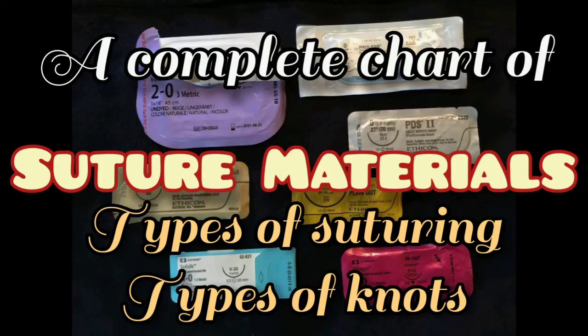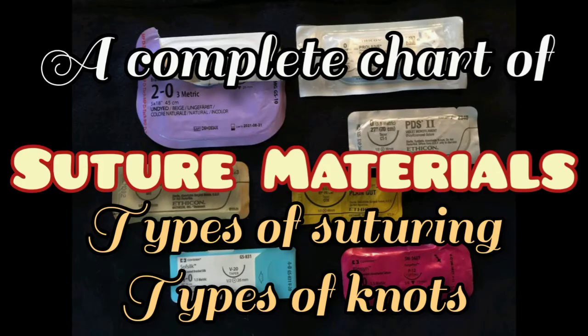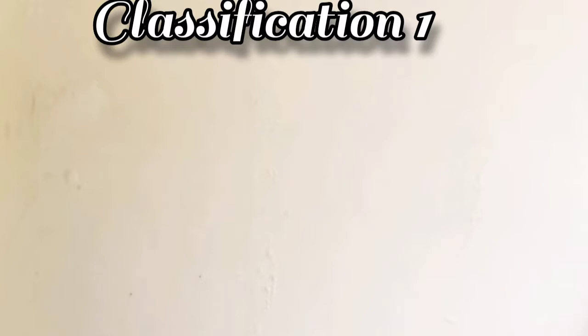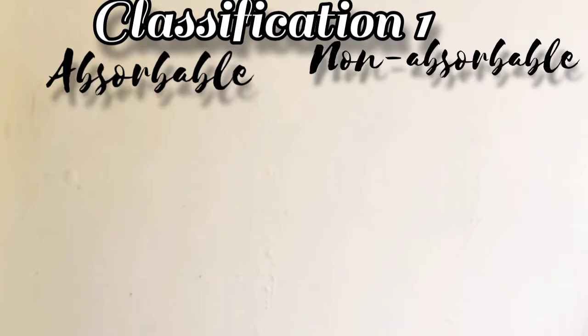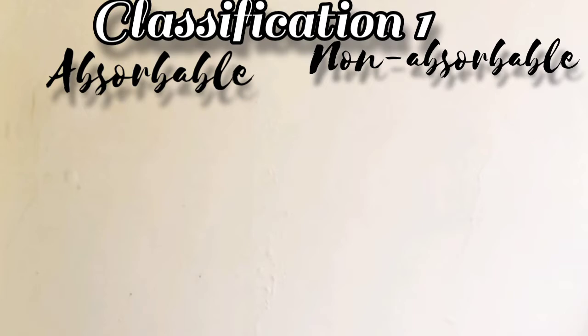This video gives you information about suture materials. Let's go to the classification one: absorbable and non-absorbable suture materials.